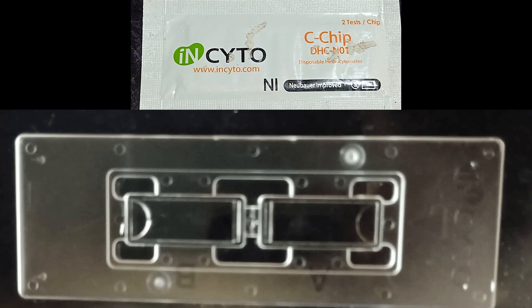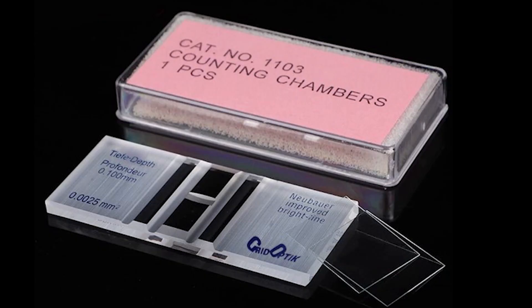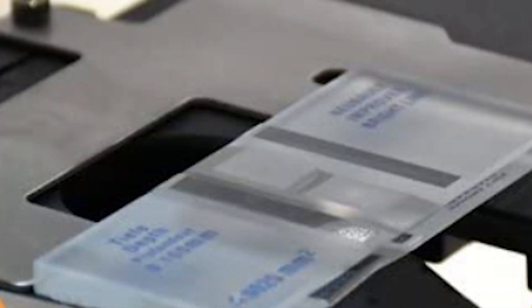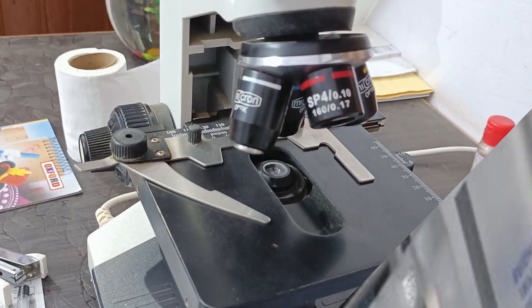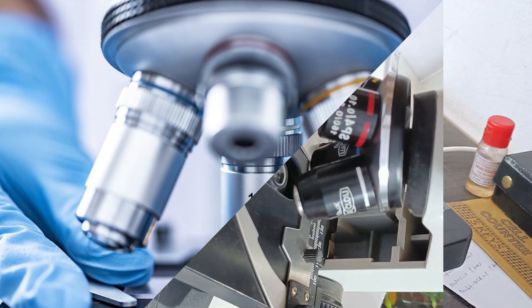Disposable counting chambers are also available to minimize infection risk. Cover glasses for counting chambers are different from regular thin cover slips used for urine wet mounts or slide mounting — never use those thin cover slips, as they can give errors in calculation. Before use, check the counting chamber with the cover slip under the microscope for any dirt or oil, as oil from the oil immersion objective can drop on the cover slip and make cell counting difficult.